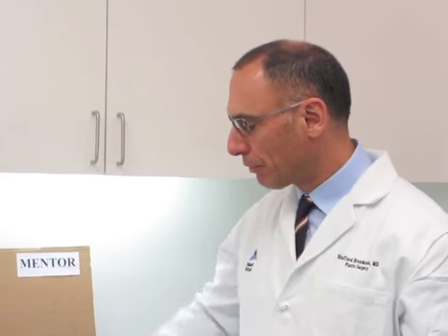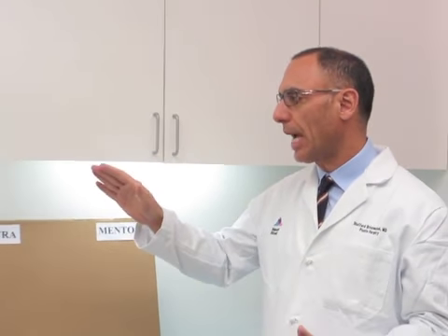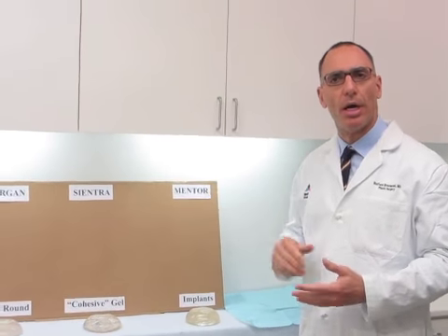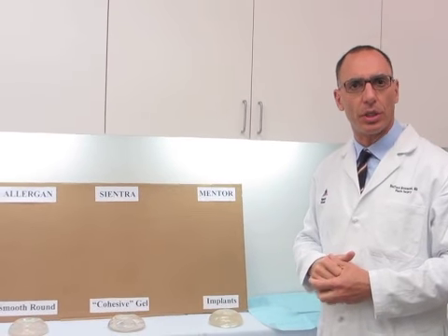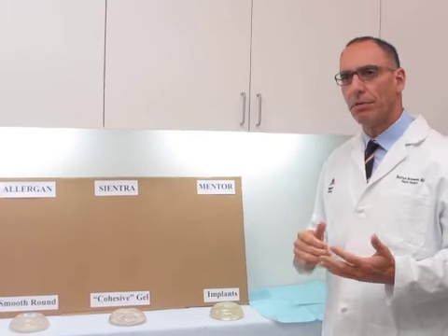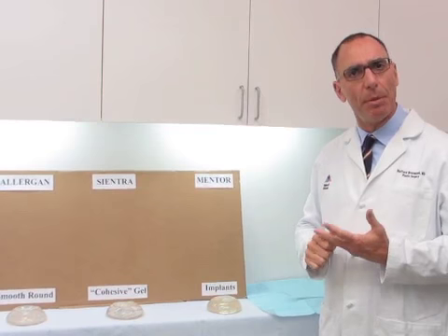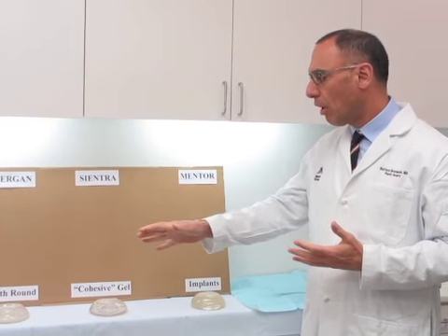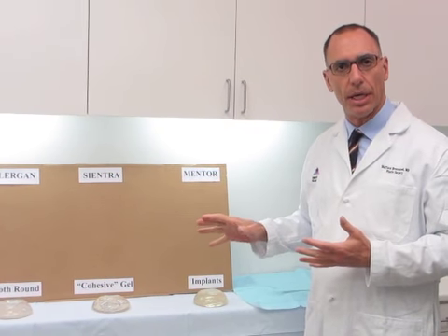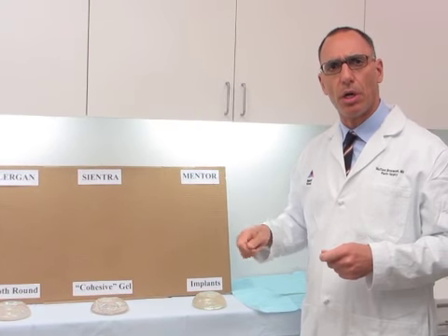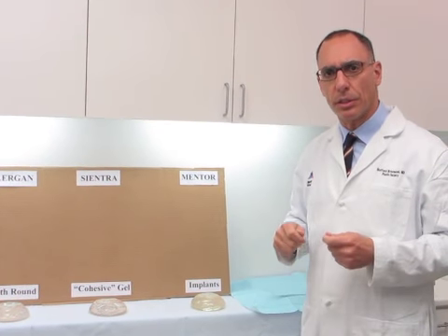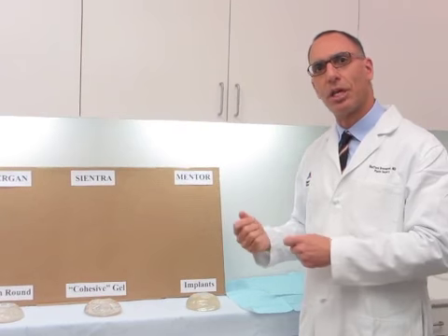We don't know what happens when you cut through these implants between Allergan, Sientra, and Mentor. There's an ongoing discussion today of the difference between Cohesive Gel and Gummy Bear Implants. These are all three Cohesive Gel Implants by the three different manufacturers. So today, we're going to cut them in half and see what happens. Let's take a look.